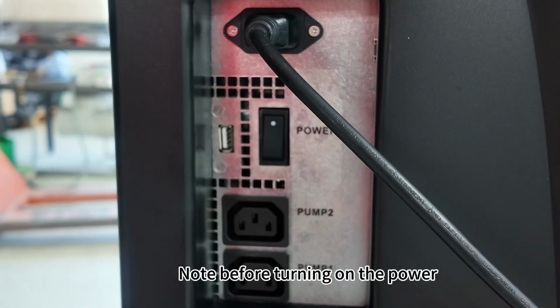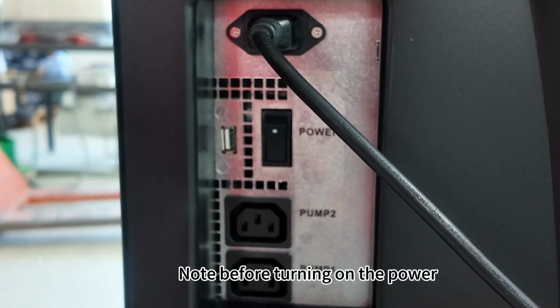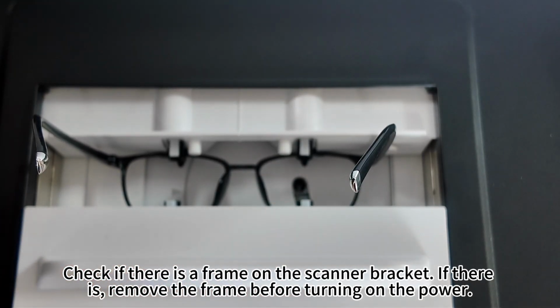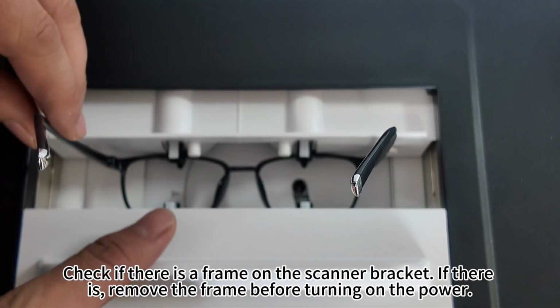Usage instructions. Note 1. Note before turning on the power. Check if there is a frame on the scanner bracket. If there is, remove the frame before turning on the power.